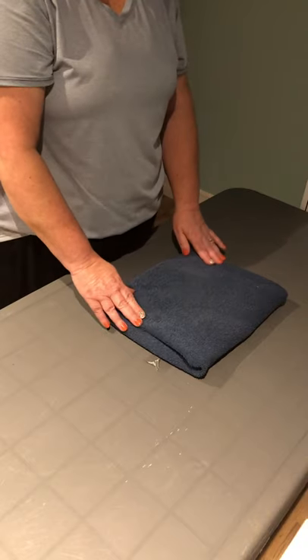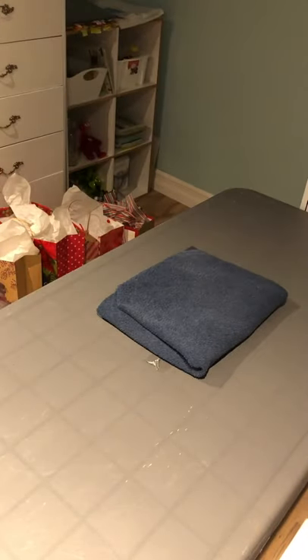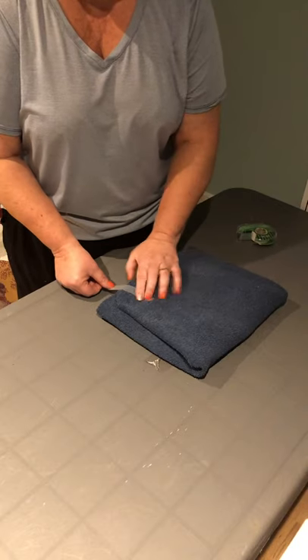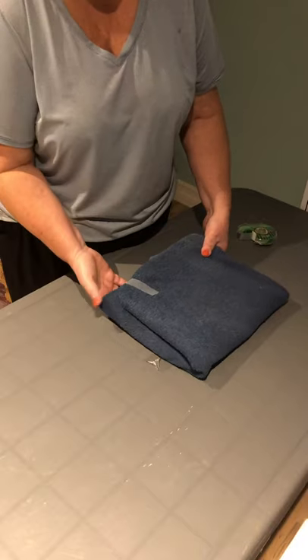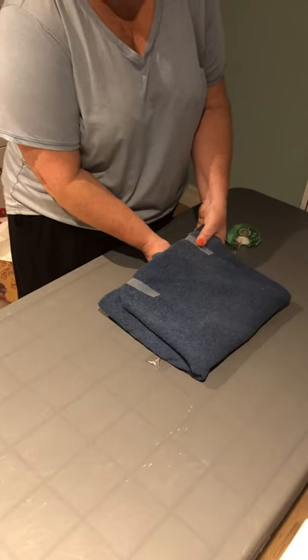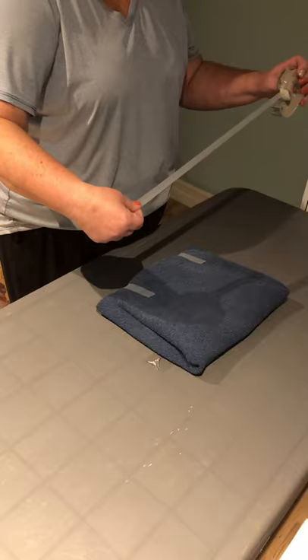For the packaging tape I'm going to use scotch tape because I don't have packaging tape. I will take the indicator tape and fold it over the package — under and over — and then one long piece across the sides.